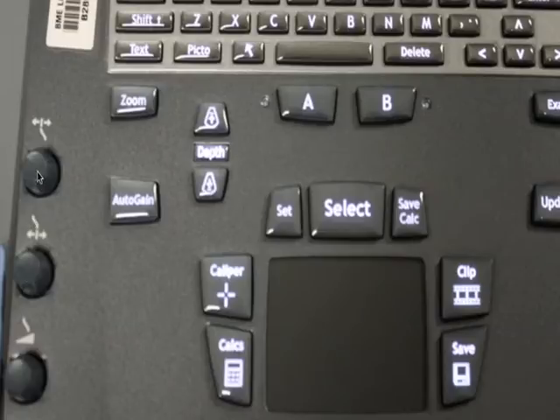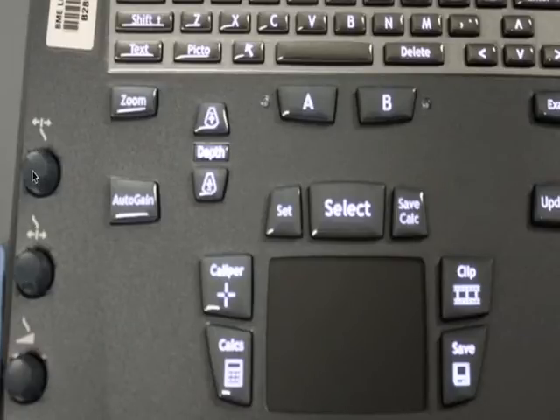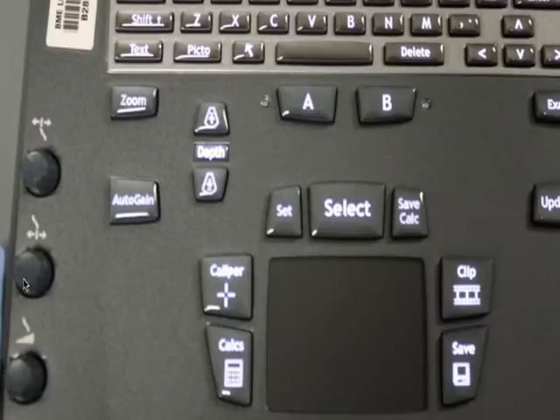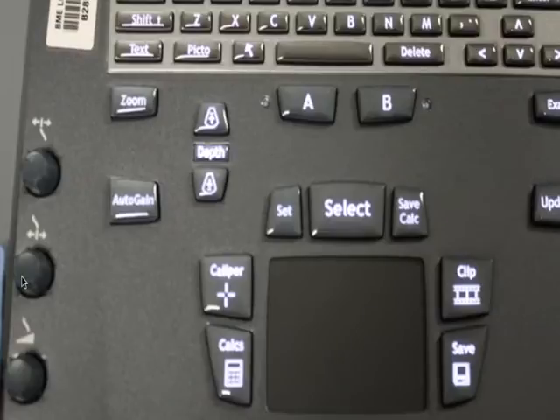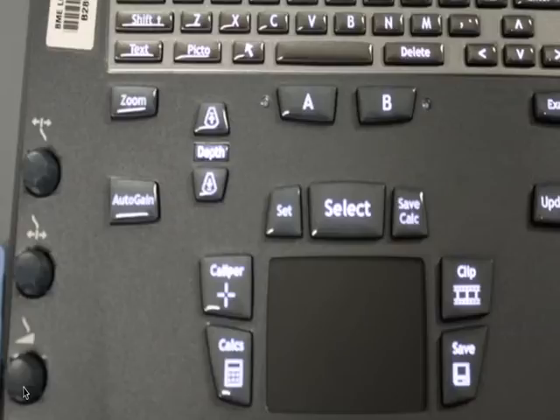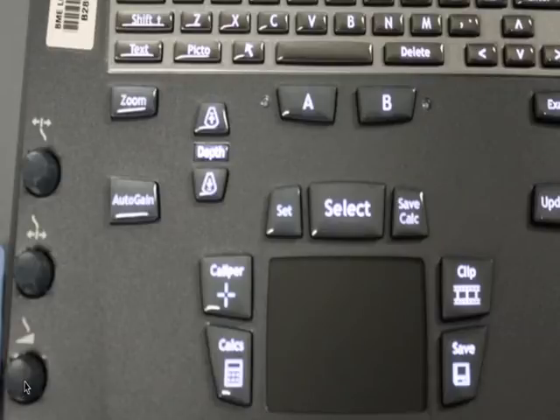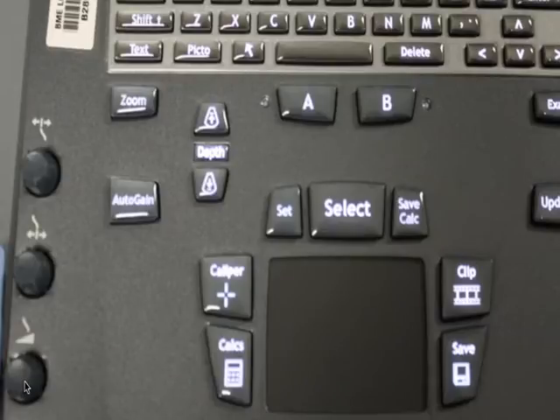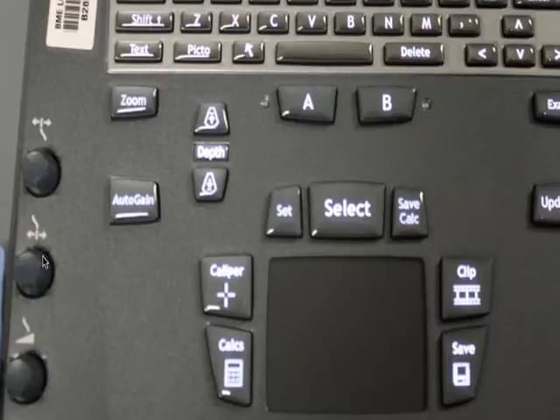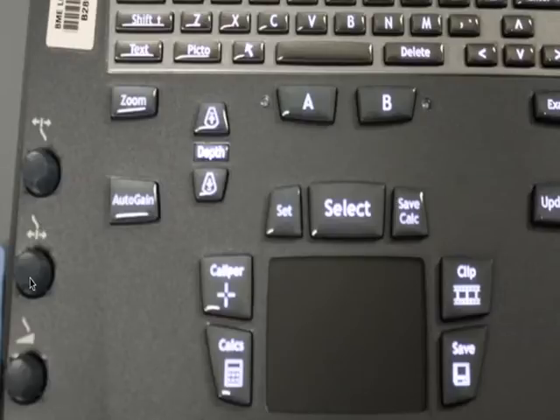The gain, found on the left side of the dashboard, consists of a near field gain — that is gain in the upper half of the screen — and a far field gain dial that will control the gain in the lower half of the screen. The overall gain dial is here, which will be more familiar to many of you from previous machines that have a single gain dial. In general, this will be the dial that you'll use. However, as your eye improves and you recognize gain problems regionalized to the upper or lower half of the screen, the near field and far field gain dials will be more helpful to you.